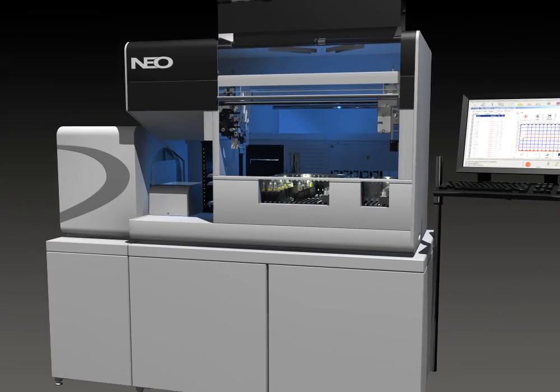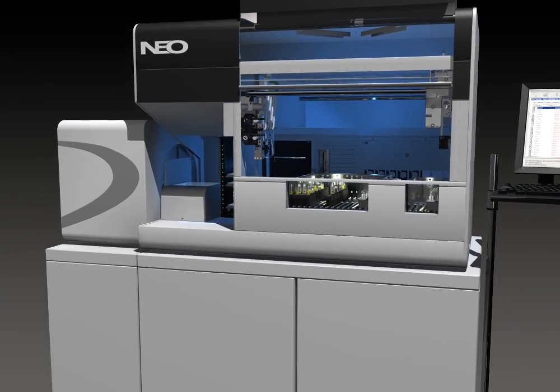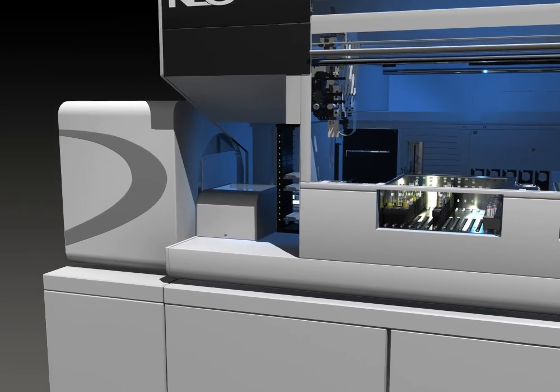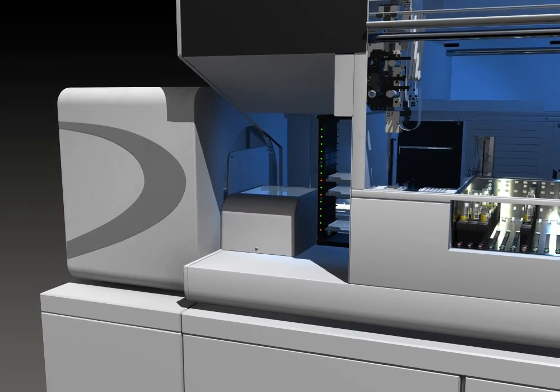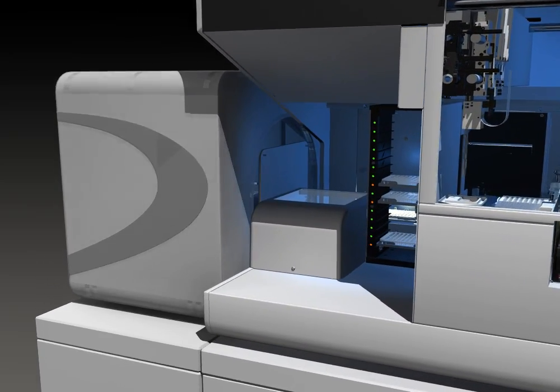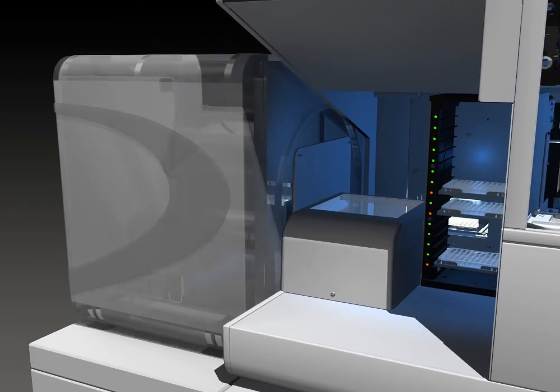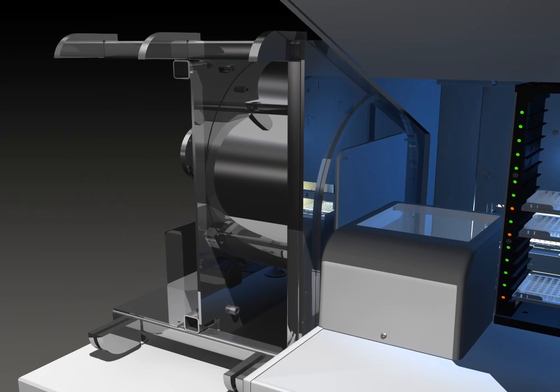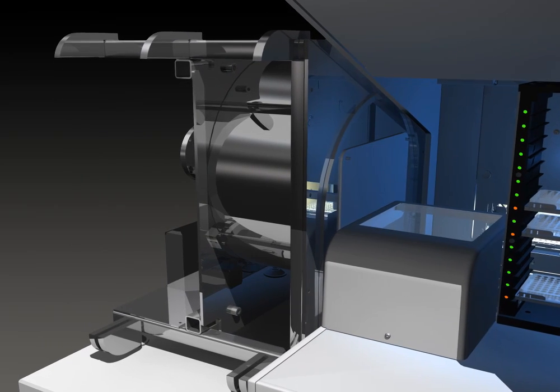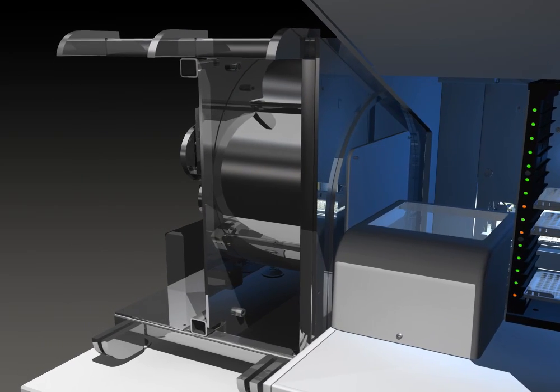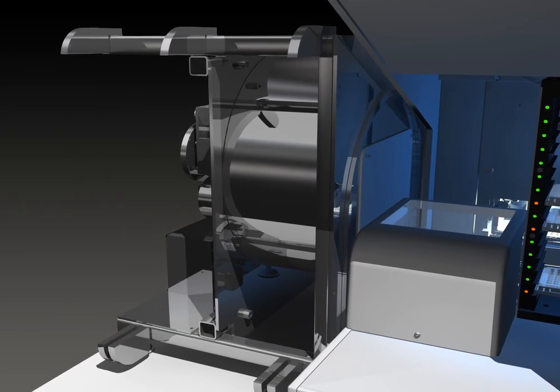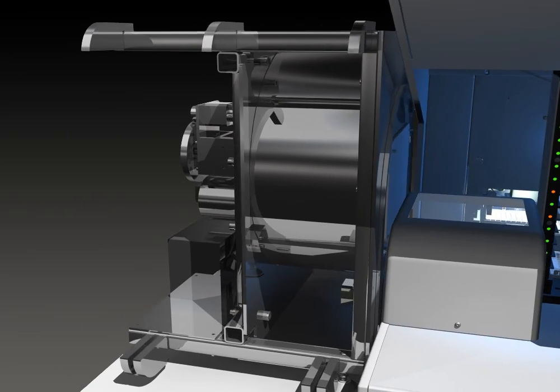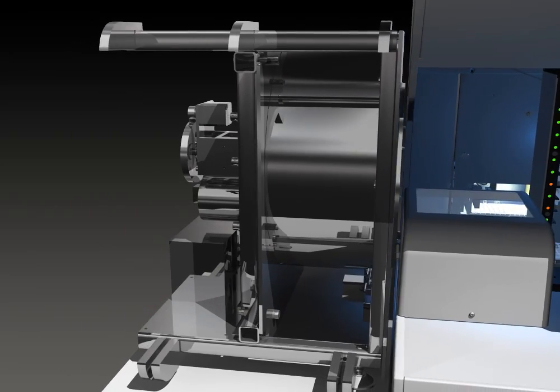To the left of the washer is the centrifuge module. This is a plate-based centrifuge with the capability to spin full or partial microplates. The centrifuge is self-balancing and also features a shake mechanism for re-suspending hemagglutination reactions.